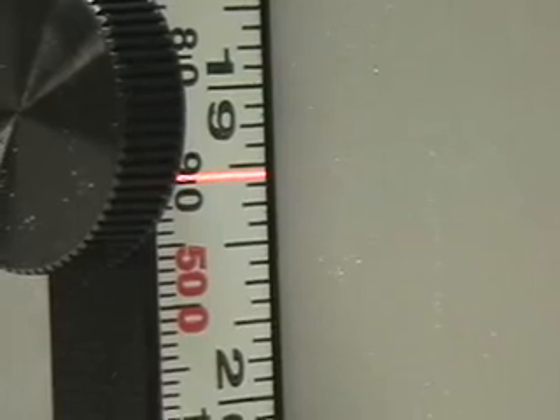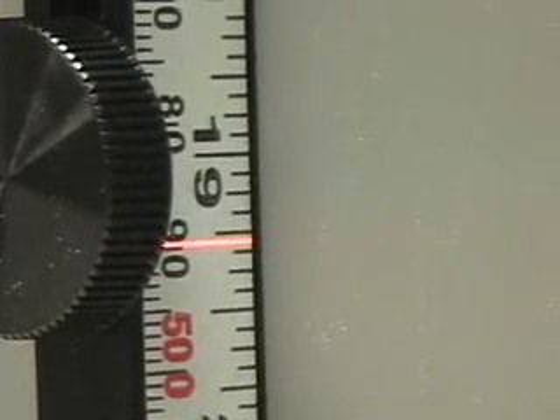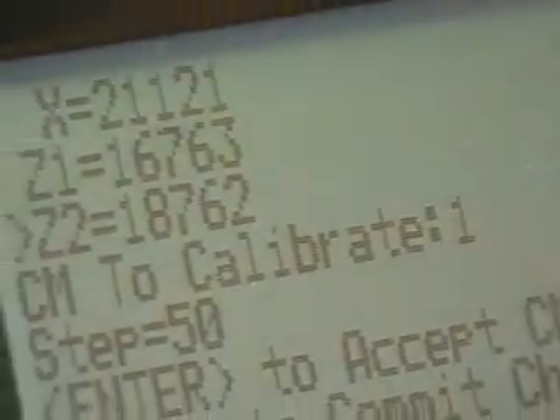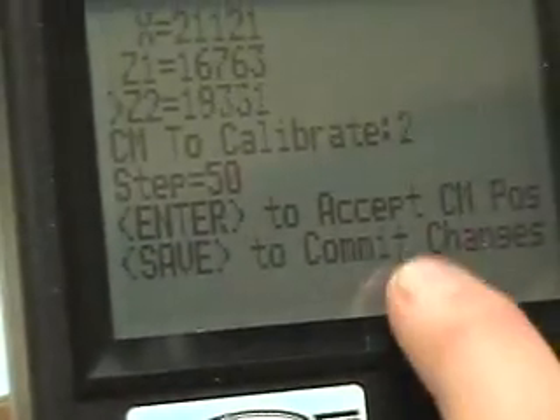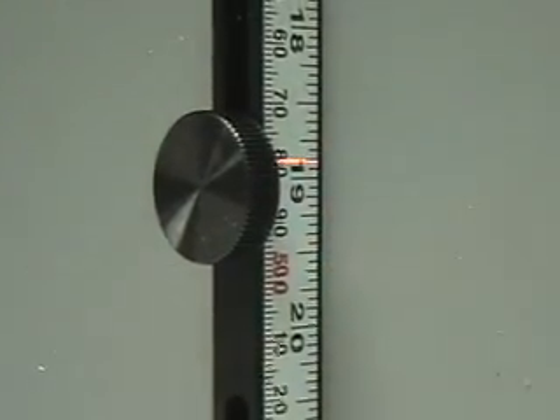The main adjustment — left to right arrow. Now you want to check the next centimeter. You look on the pendant, centimeter to calibrate. Needs to go to two. Two there, and using this arrow — the up arrow does the positive centimeter. So I'm going to press this. It says two there and it went up — two centimeters up from ISO 7.